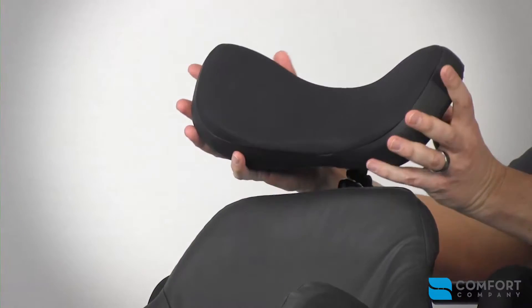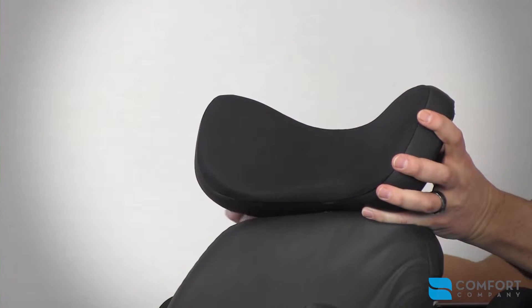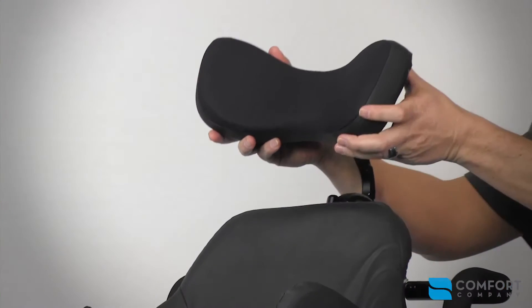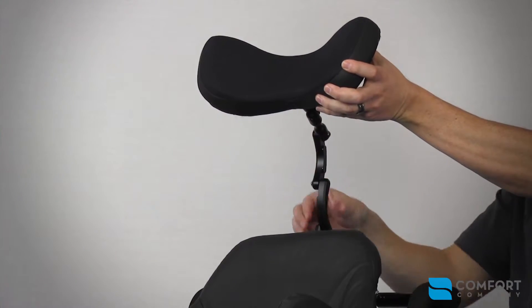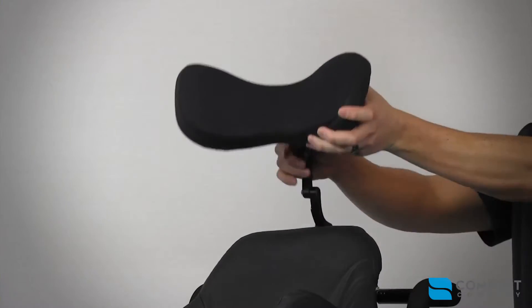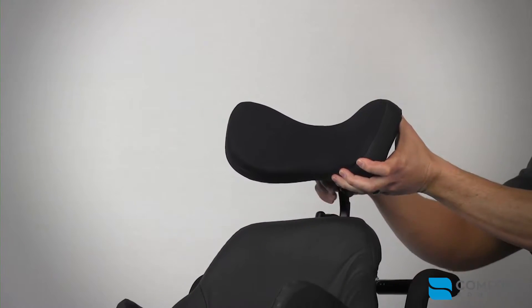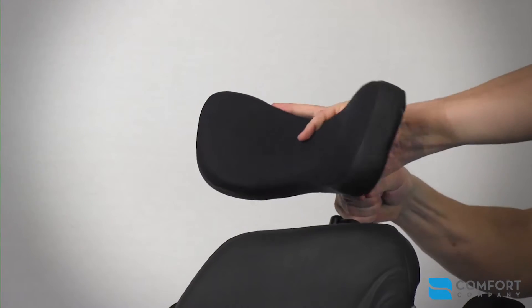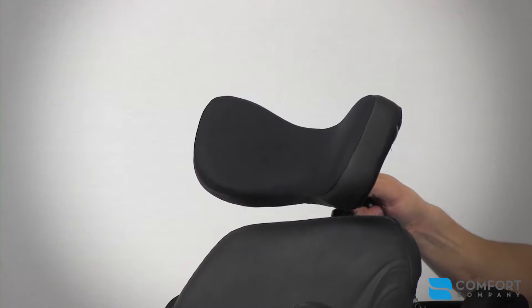With the three largest widths, we have an angle adjustable lateral wing that can be locked into place from the backside of the headrest just underneath the cover — an Allen wrench will lock it into place. The BodyLink head support has the most advanced range of motion, all due to it utilizing five independent joints. Once the head support is in the desired position, you can lock it into place using our interlocking gear teeth located deep within each joint. This positive securement method is a favorite among technicians and ATPs.